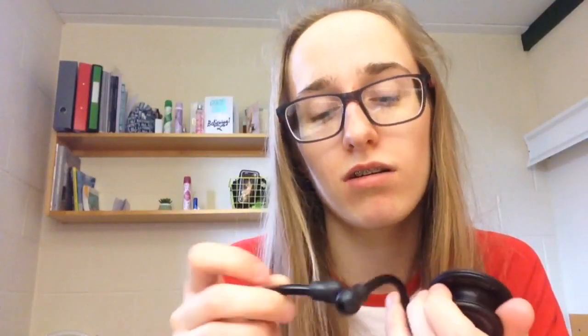You don't realise how special these feel because stethoscopes are so expensive, so to actually get one is amazing. It's dual-headed as well and I'm a student paramedic. That's just a little unboxing for you — to finally have this stethoscope feels amazing. I've wanted the black metal for so long and it's just so nice. The silver is really nice but the black is just something else. I'll leave that video there — see you very soon, bye guys!